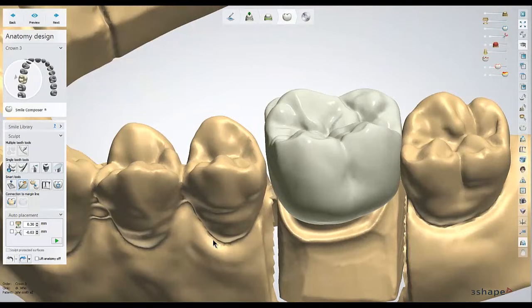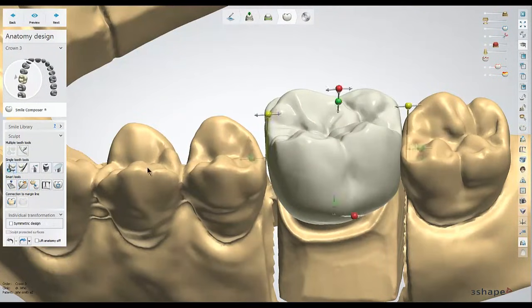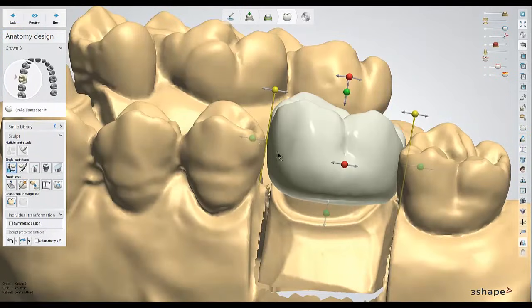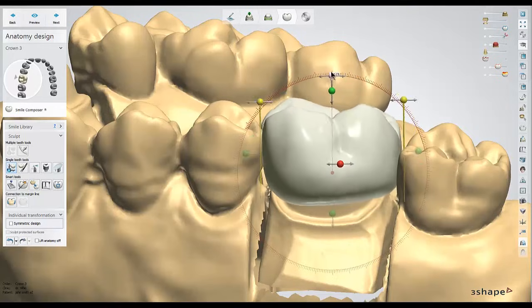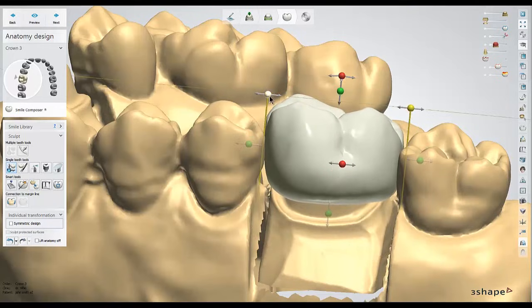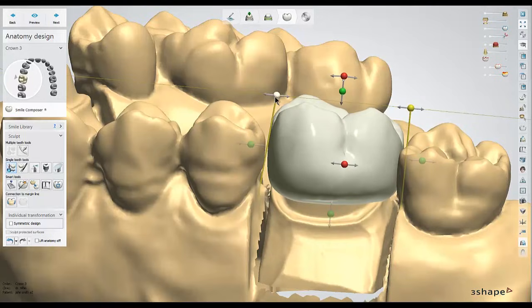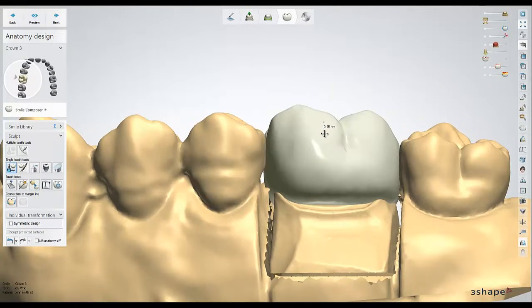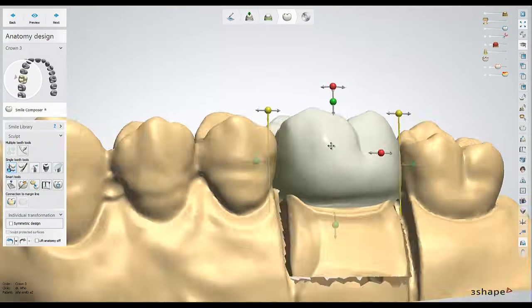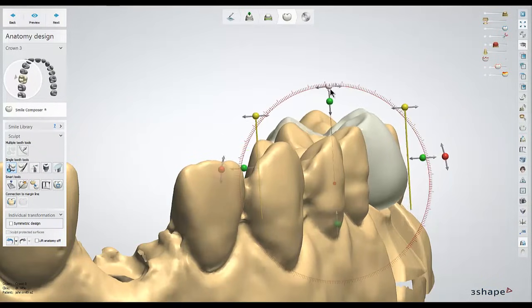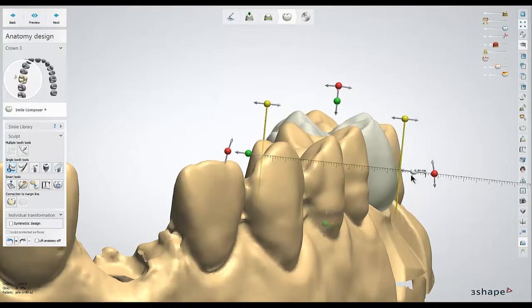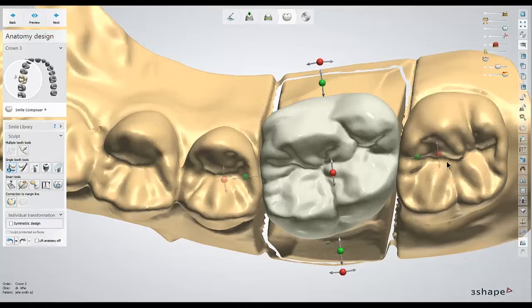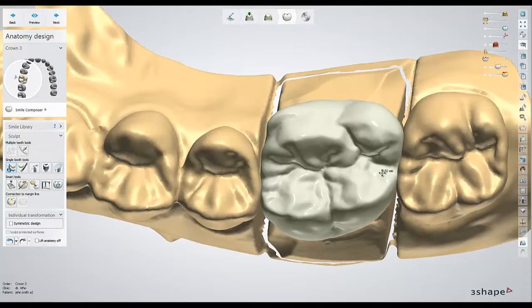If I happen to not like the auto placement, all it means is I'll just hit undo and move on to one of our other tools. If the auto position didn't work, I could use the transformation tool to adjust the size of the unit with the green sliders, the rotation with the red sliders, or the angle of the side with the yellow sliders. I'll continue and move this into position, switching between a buccal, profile, and occlusal view to get this crown lined up with the other teeth.